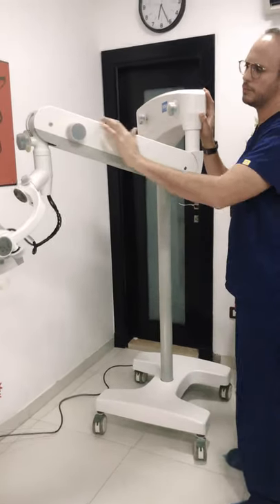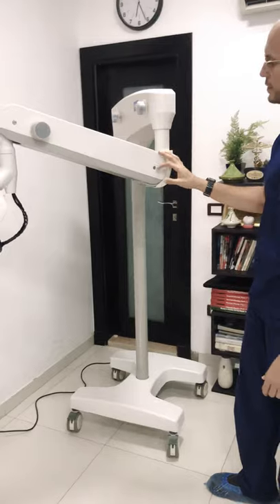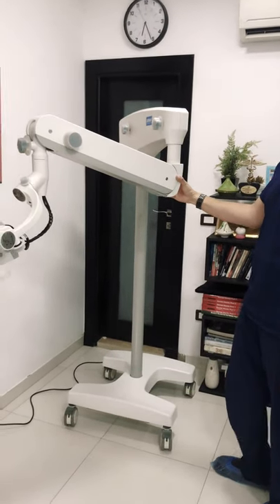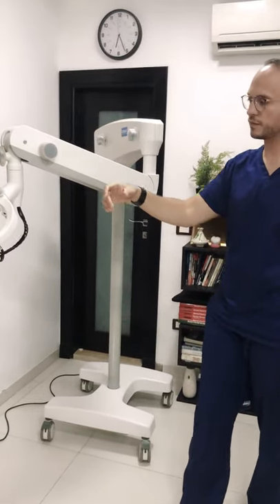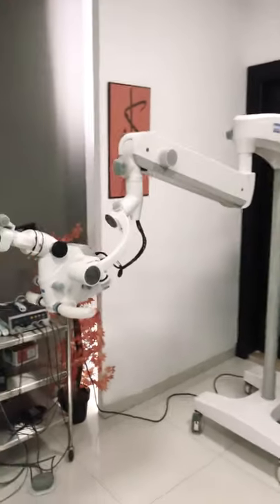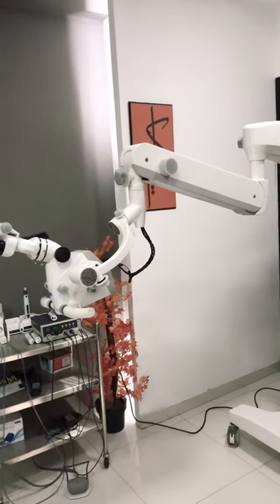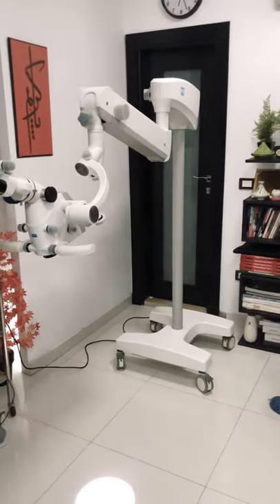The length of the arm according to the manufacturer is the standard one — the 75 cm model. The company says they also provide a 95 cm model, an extra 20 cm. This is still shorter in length compared to the Leica microscope, but still better than the Optomic we viewed earlier and other models by different companies.